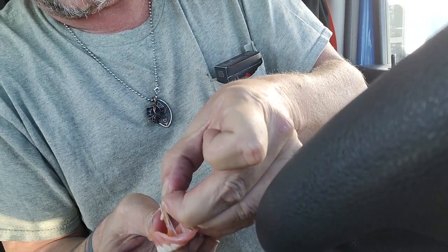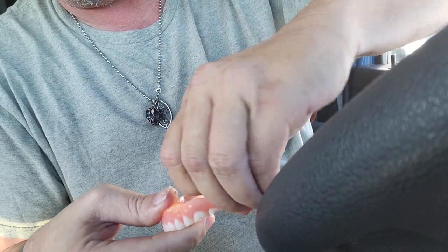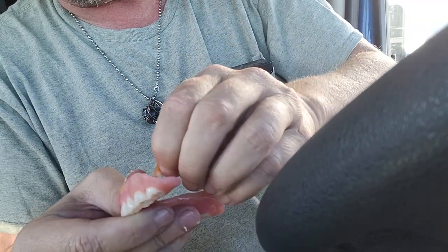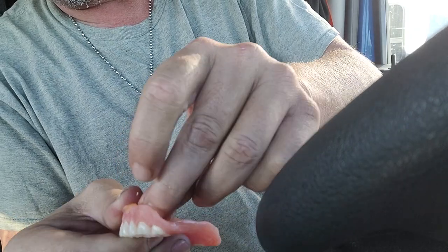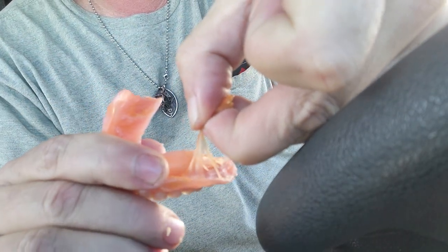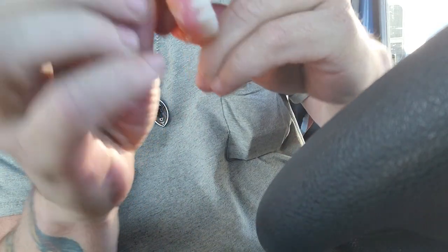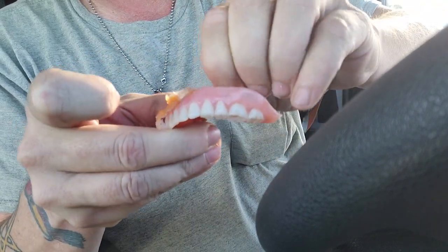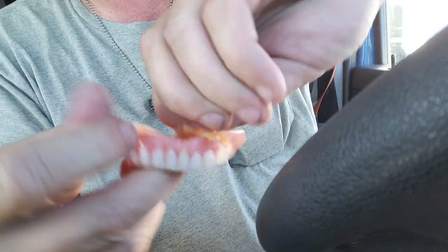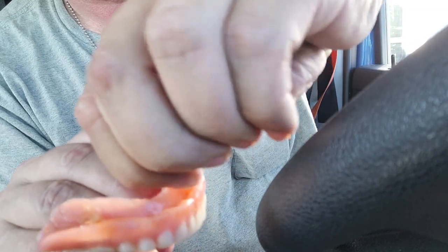You can see it's grabbing on, staying in one piece. It works a little better if you let it cool off a little bit and don't do it straight out of your mouth, but once you can get it to start pulling up — just start peeling it up. If you leave it in a continuous line like I said, and let it cool off a little more, it's a little easier because it's real pliable when it's warm. It just pulls right up all in one piece — just take your time, a little bit at a time.